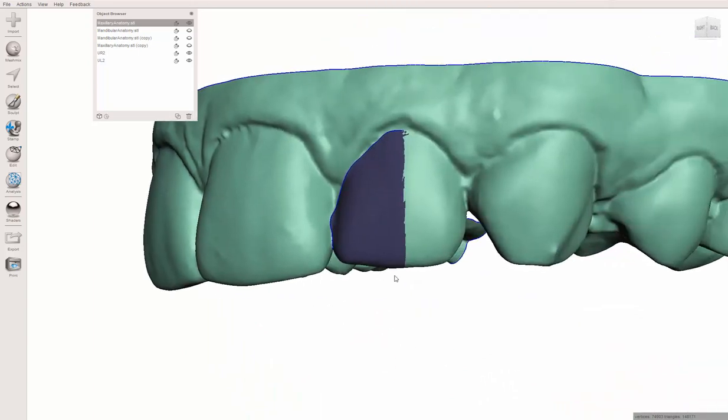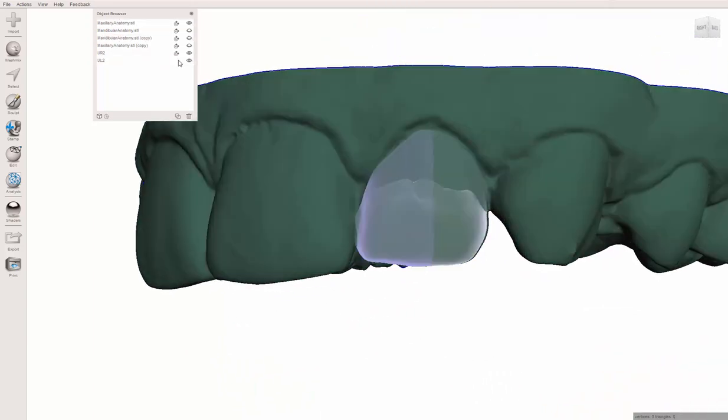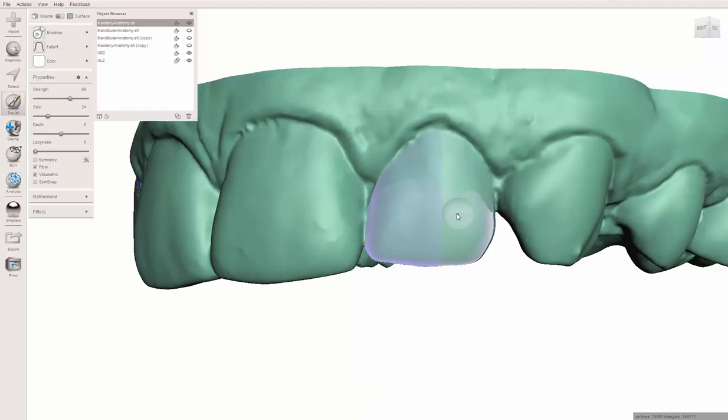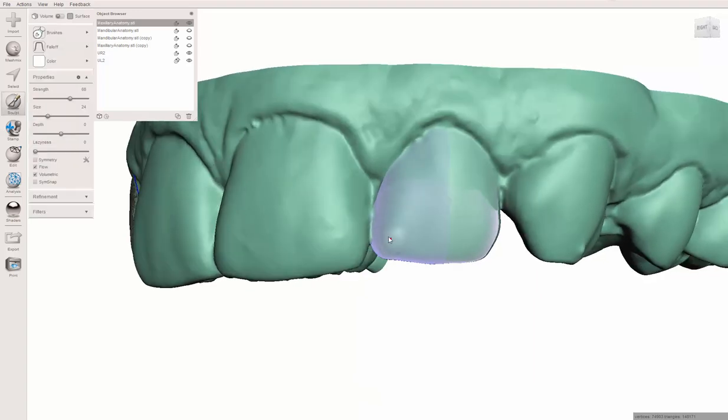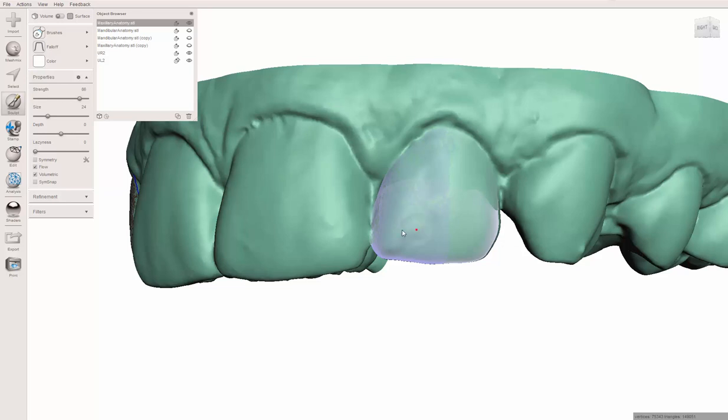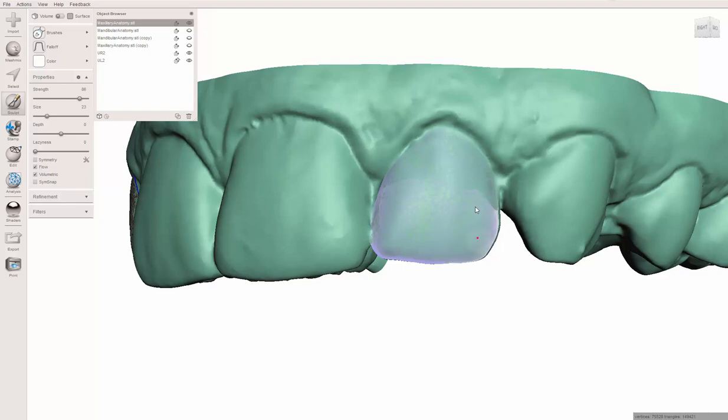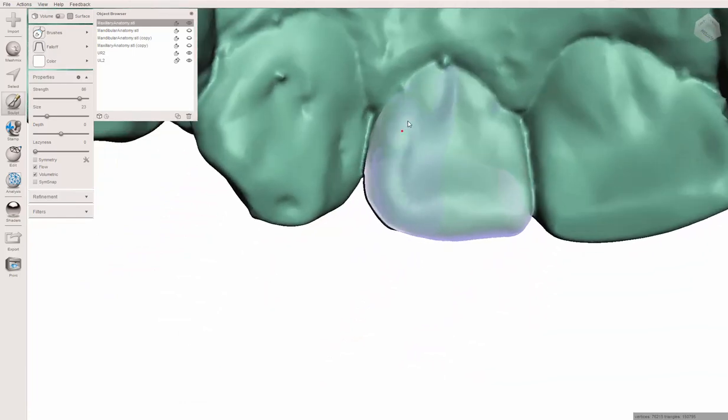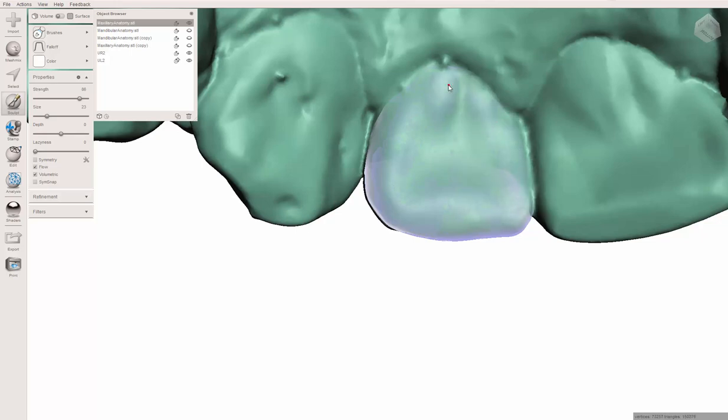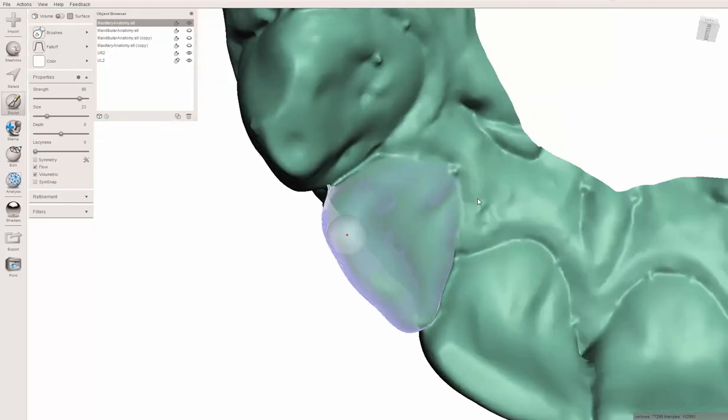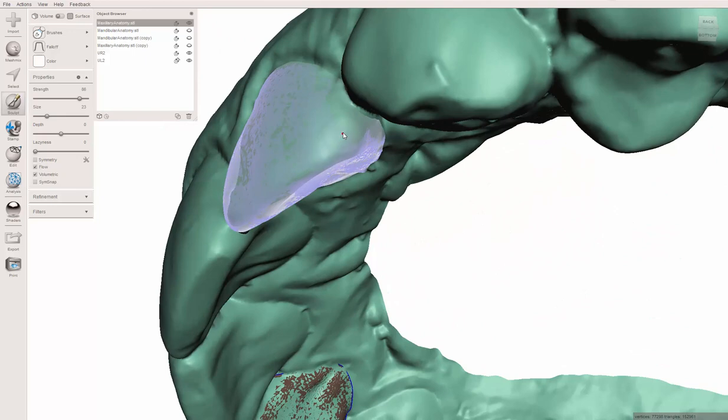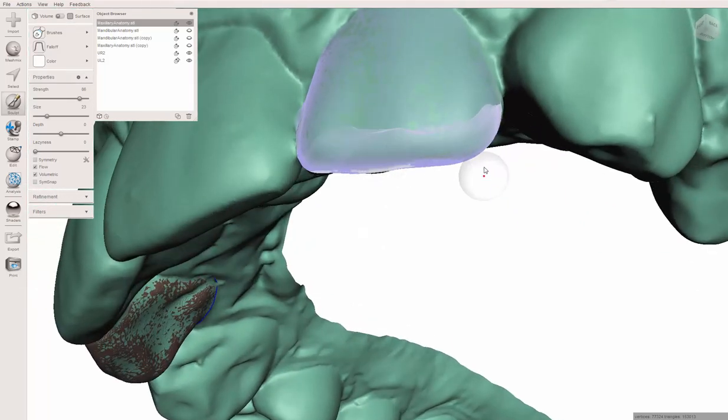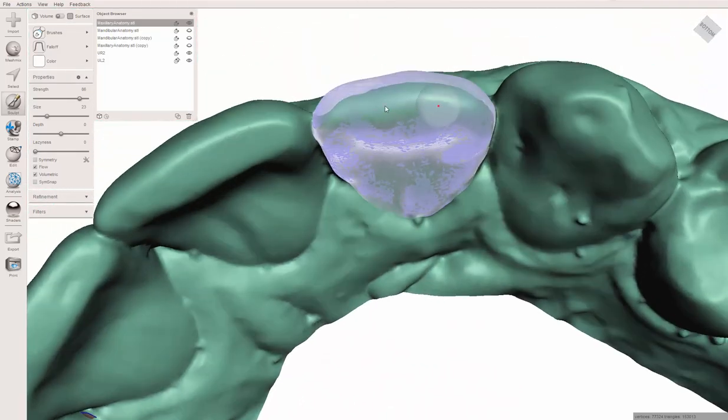Looking pretty good. Let's turn this guy off and you can see that it's pretty well adapted everywhere. That seemed to work, so I'm going to do it quickly on this side. I'm going to do it a little bit quicker because I'm not going to divide it up so much. I'm just going to get all of this. You can dial up the strength and even dial up the size a little bit. The problem with the size is you can fall off the edges.